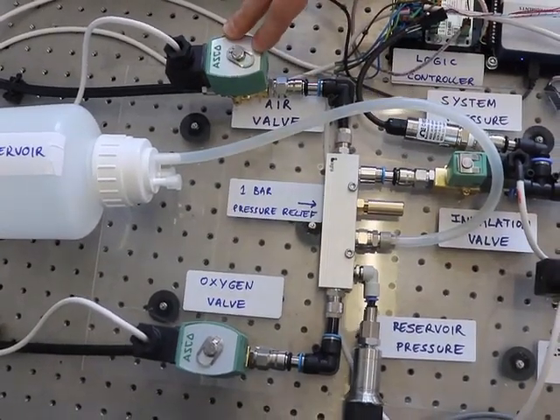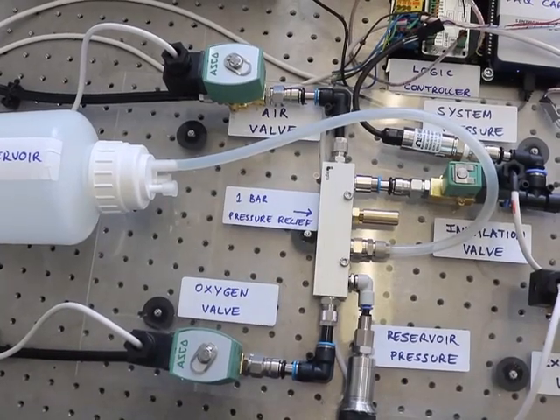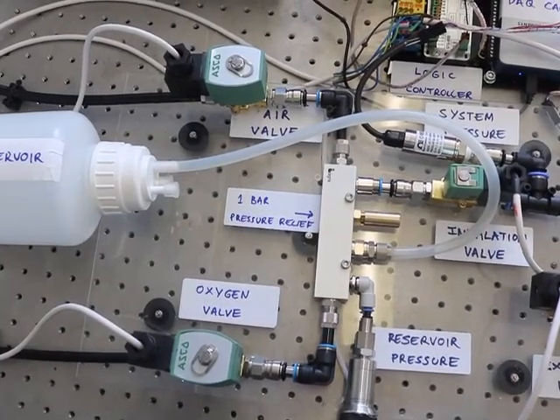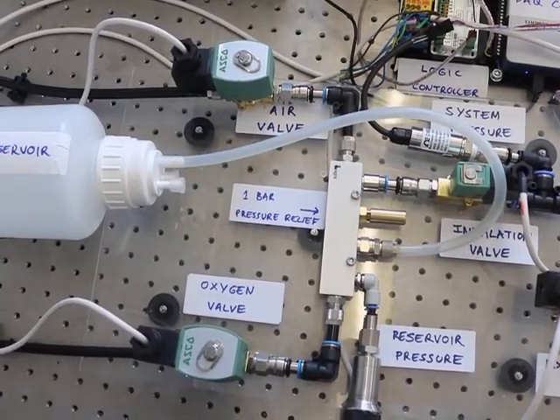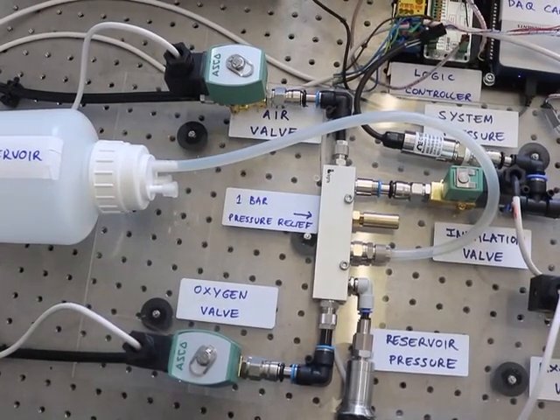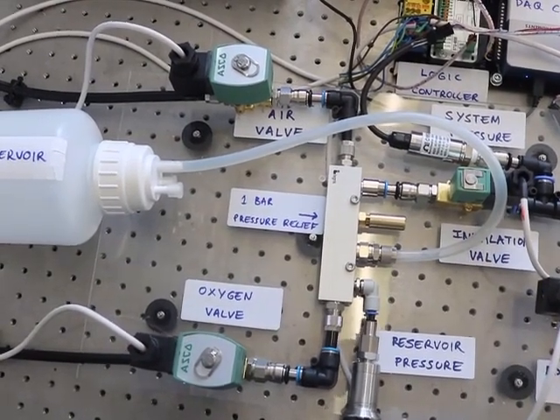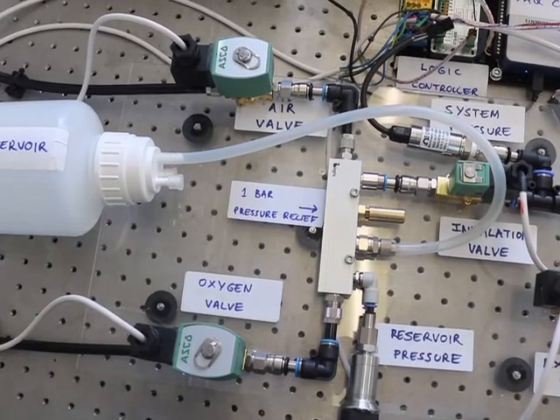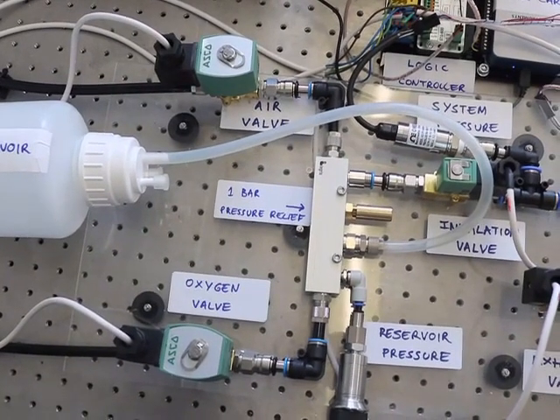The air valve is a very similar component. In fact, it's exactly the same component, but it's connected to a gas supply of air. So we can control the amount of time that the oxygen and air valves are open, and thereby control the concentration of oxygen in the reservoir, which will eventually get delivered to the patient.